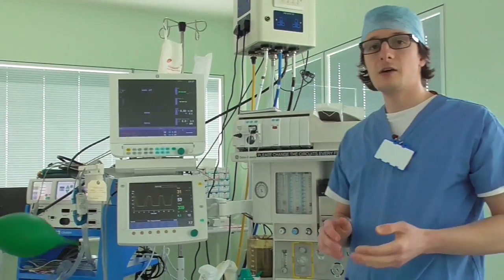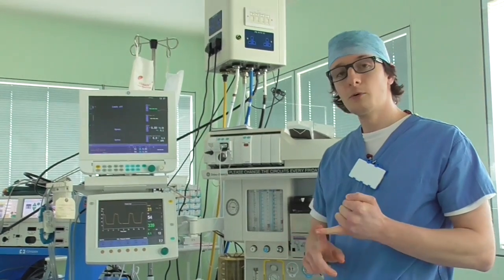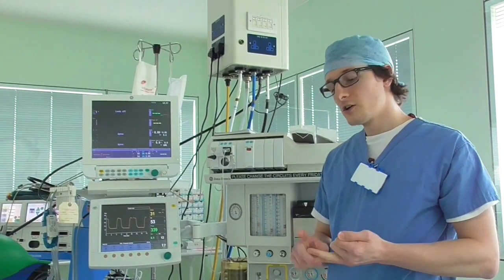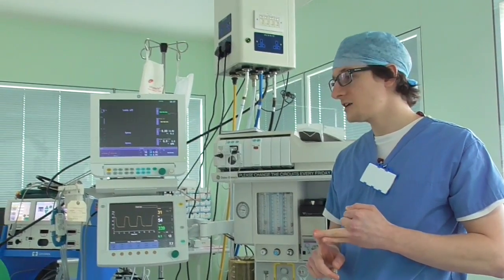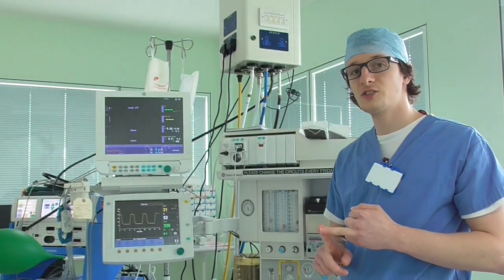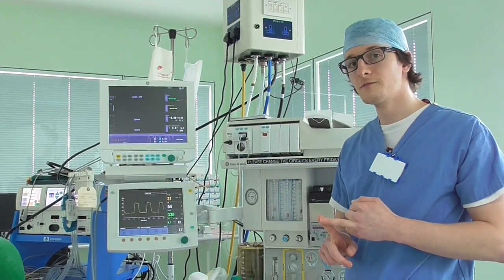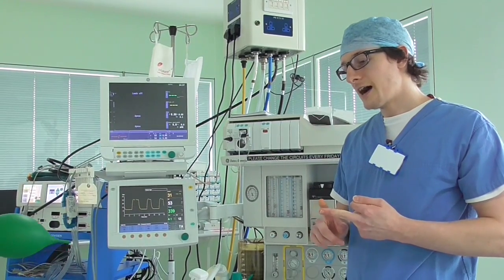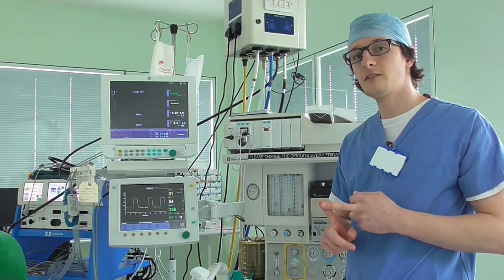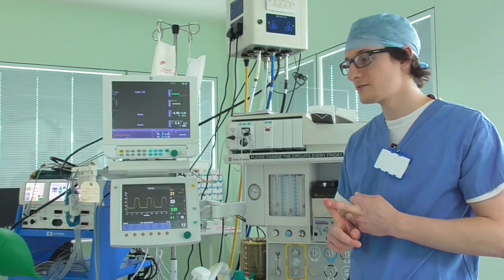What this machine allows us to do is to safely enable patients to breathe while they're anaesthetised. It has lots of safety features that protect the patient, such as delivering a constant supply of oxygen, and it controls very carefully the amount of air and the amount of pressure that is received.